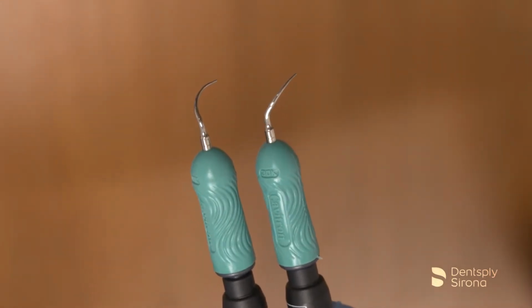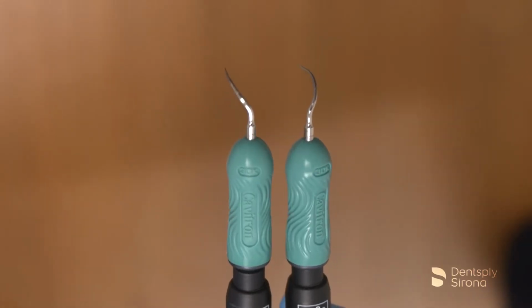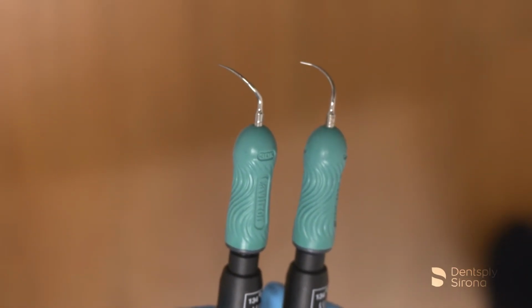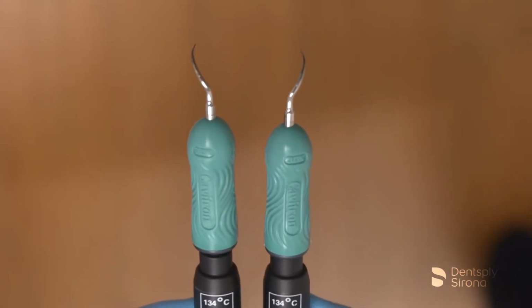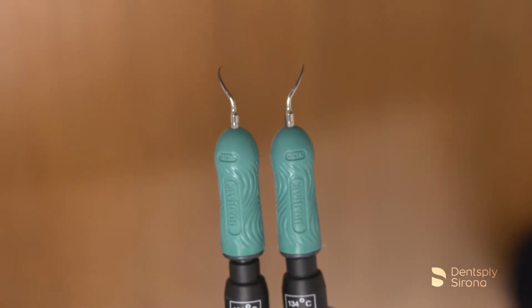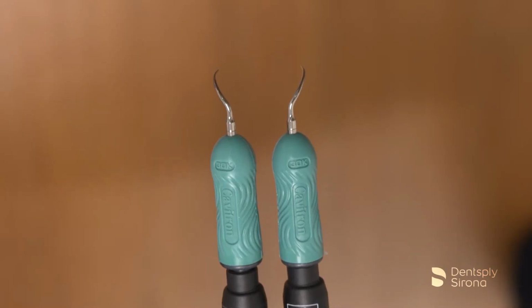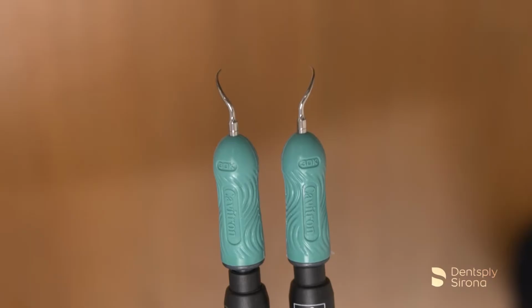Adapting the curved insert properly requires a fundamental knowledge of the tooth's anatomy and proper placement on the appropriate tooth surface. In order to identify which insert one is holding, it is recommended to begin by holding the inserts parallel to the floor with the points facing down, or perpendicular to the floor with the points facing away from the clinician. The right insert will curve to the right and the left will curve to the left.